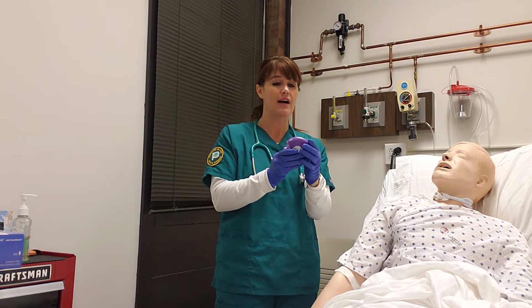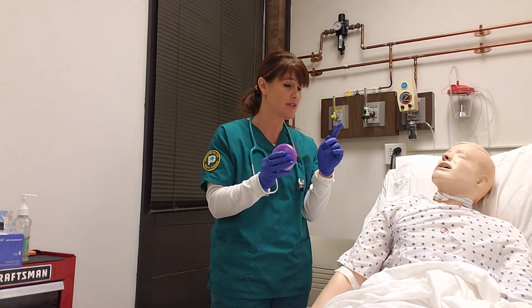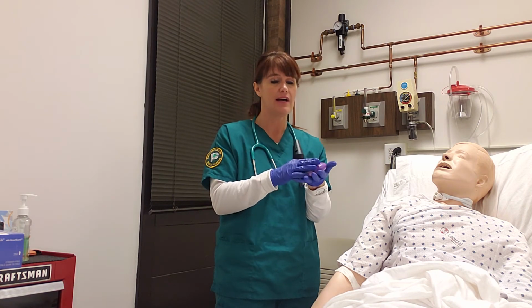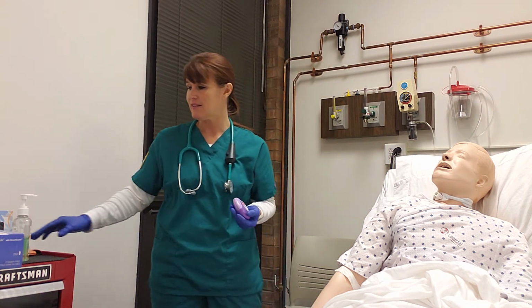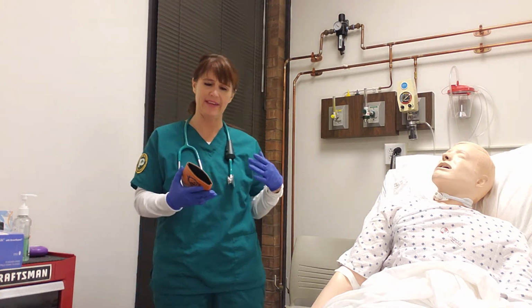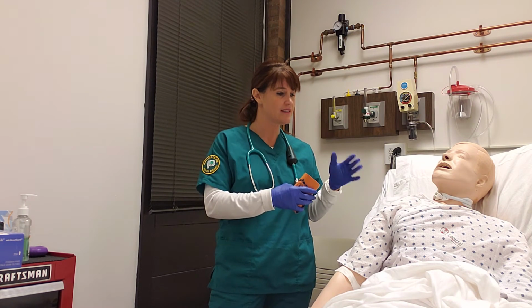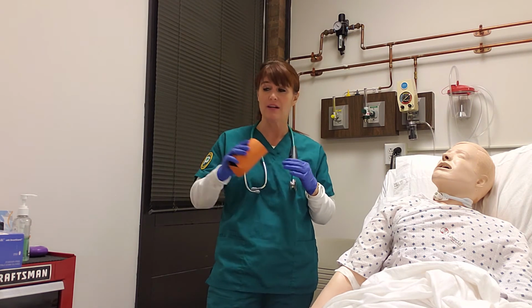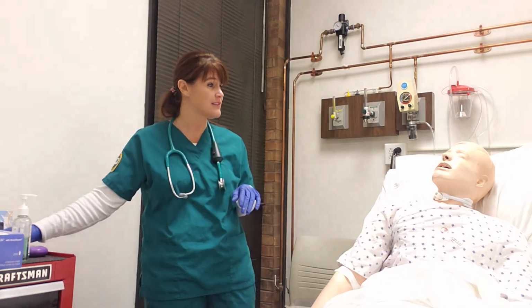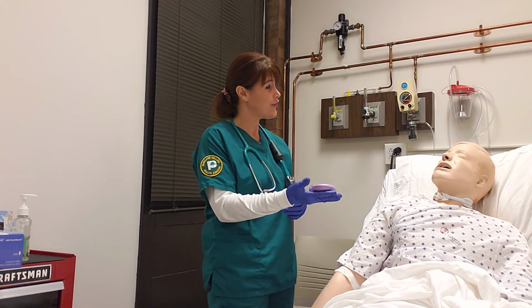This medication, I'm going to need you to do 1 inhalation twice a day, 12 hours apart. So just do it morning and night. Another very important thing is that this has corticosteroid in it, so it can actually give you thrush, and you don't want that. It's very uncomfortable. So you're going to want to take a drink, rinse, and then spit back in the cup and throw it all away. You do not want to swallow any of this. So rinse and spit.